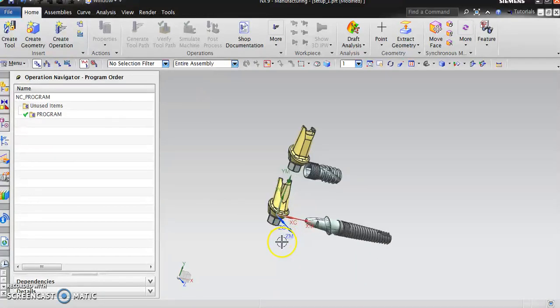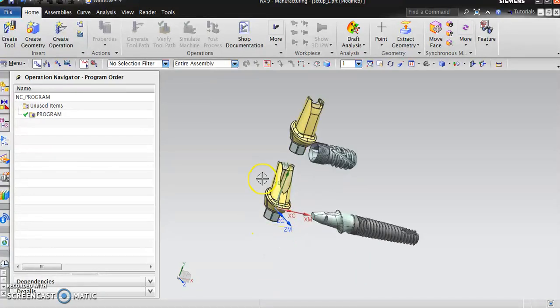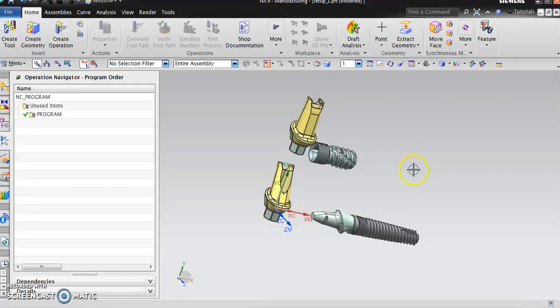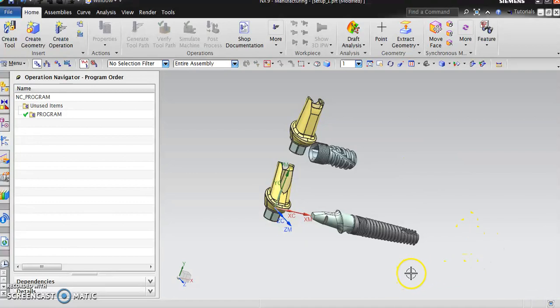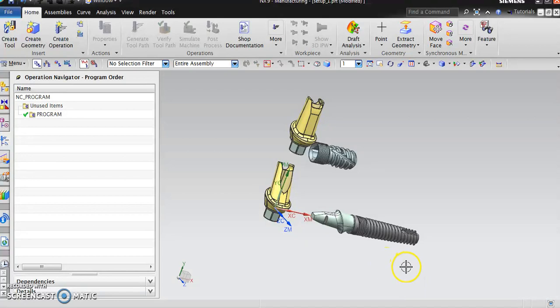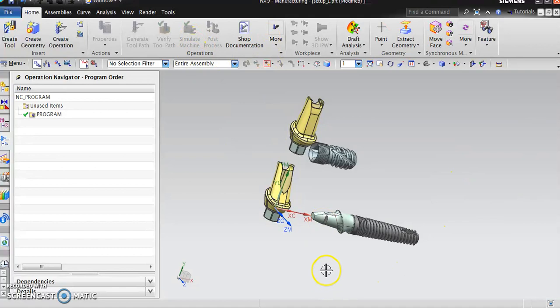How to set up the tool layout, we'll be able to create each tool, then how to apply the toolpath for each feature. From that point on, we can post process and select based on the machine type. We'll be able to post it for the control, and you'll be able to simulate using the simulate machine or we can use a Vericut to simulate it.